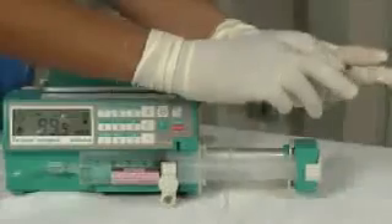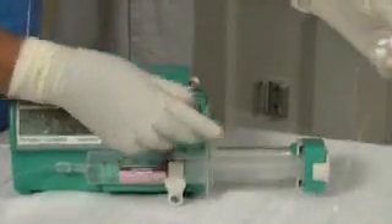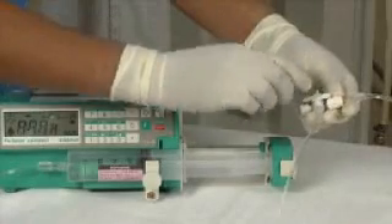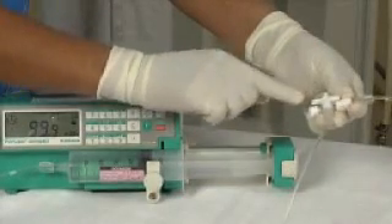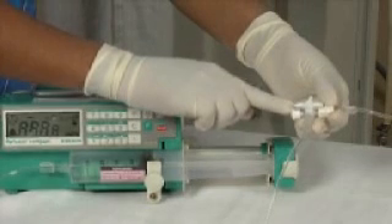The correct way for using the 3-way stopcock. As you can see, the 3-way stopcock is closed with the flat side towards the infusion tube connector, which results in the blocking of the flow of solution to the patient. Thus, the alarm goes off.